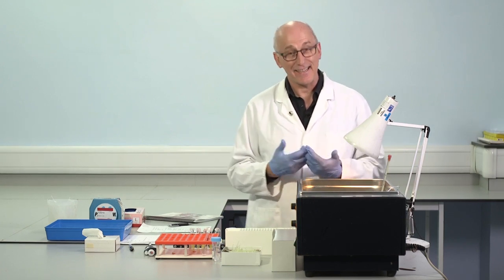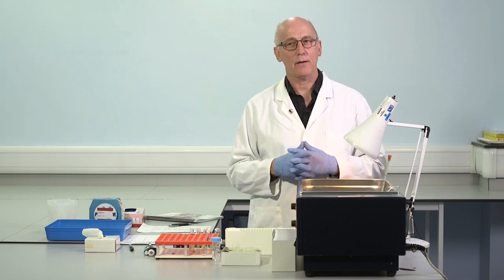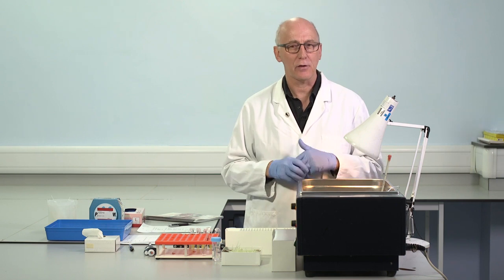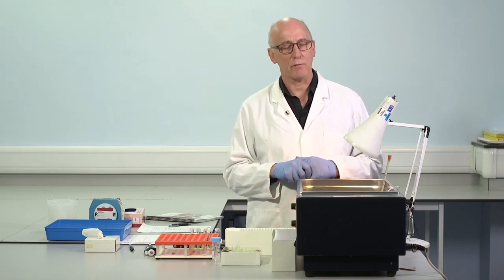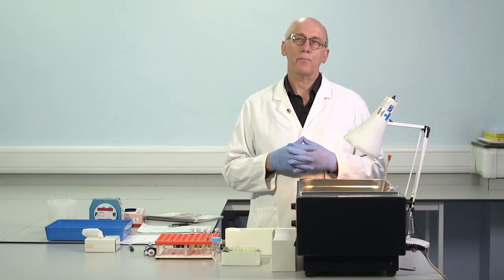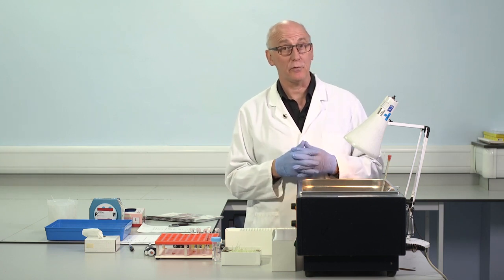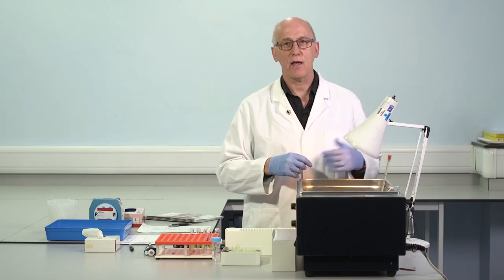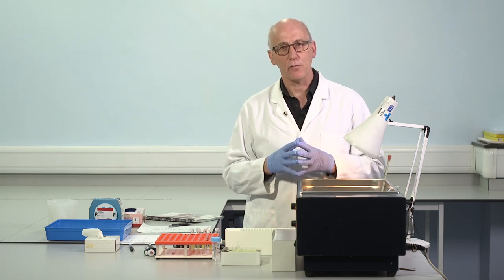It's ideal to begin with patient samples for the abnormal, and this is why I think it's useful if ethical rules in operation allow us to harvest residual plasma from patient samples. If we do this, then it's acceptable to make a series of small pools. Perhaps this is done on a series of different days, 20 mils today, 20 mils tomorrow, 20 mils over a series of days, and these can be deep frozen.